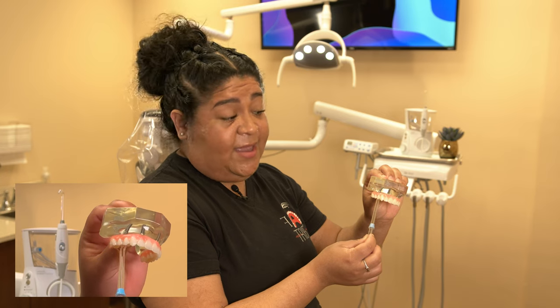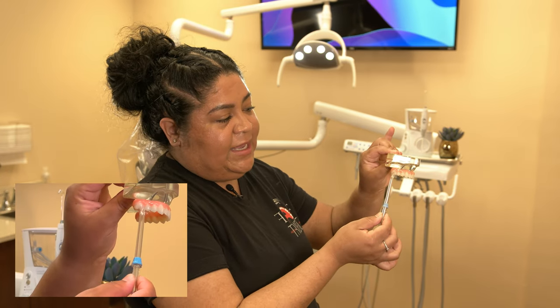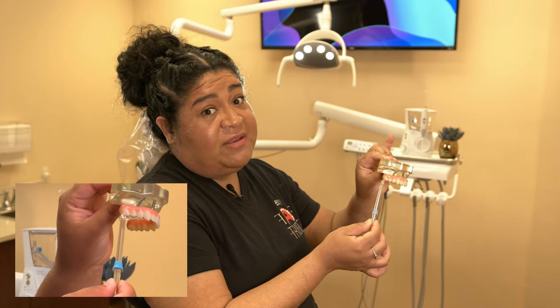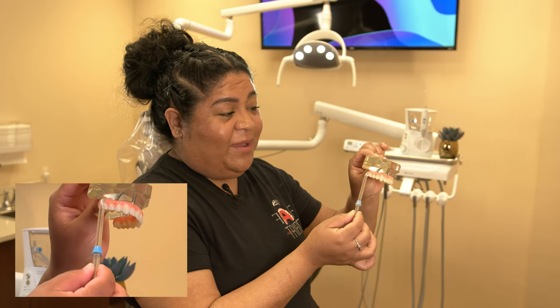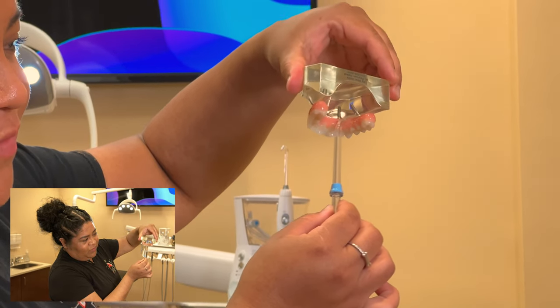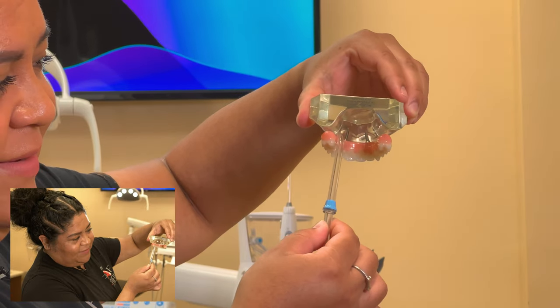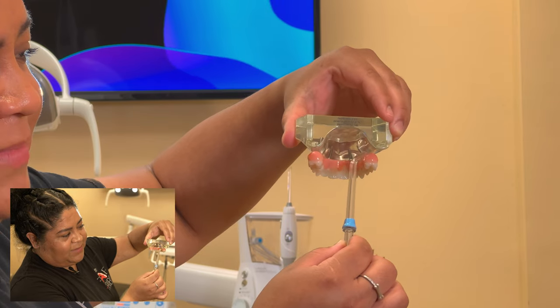Although you cannot see the inside, you can feel it. If you're waterpicking somewhere too far from the junction, you're not going to feel it and your gums are not going to be clean. Make sure you're really at that junction when working on the inside. Start on one side, move your way to the other side, and then come right back to your starting position.